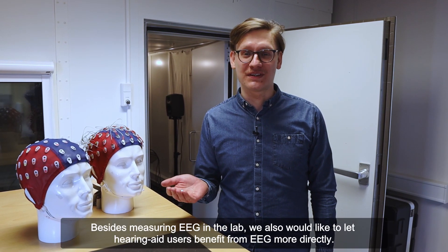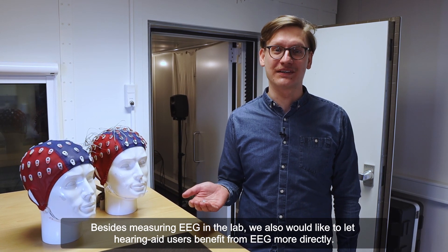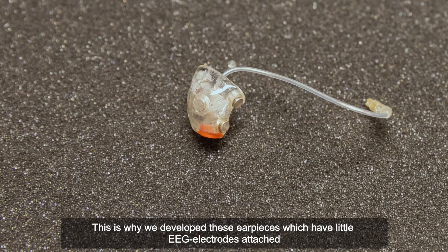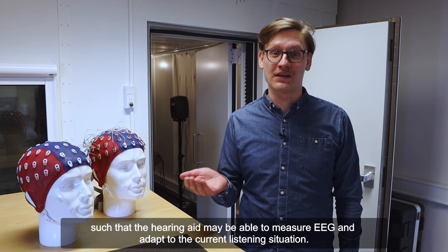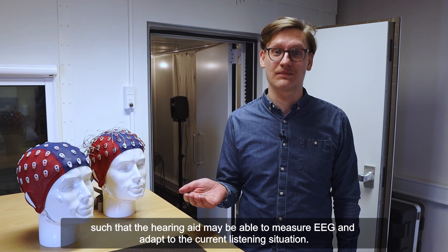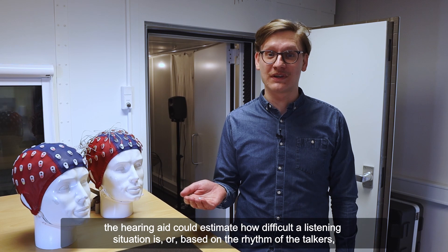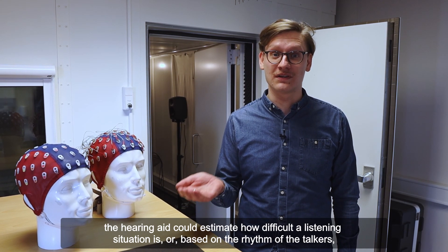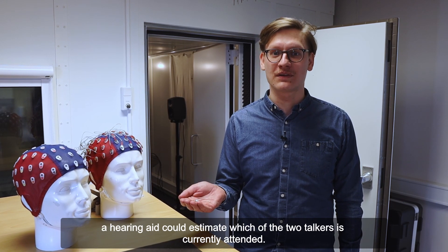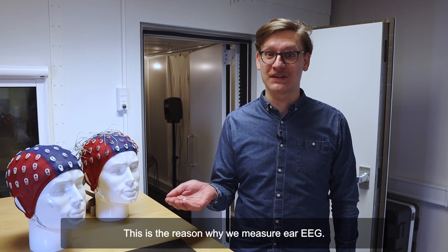Besides measuring EEG in the lab, we also would like to let hearing aid users benefit from EEG more directly. This is why we developed these ear pieces, which have little EEG electrodes attached, such that a hearing aid may be able to measure EEG and adapt to the current listening situation. For example, based on the alpha waves, a hearing aid could estimate how difficult a listening situation is. Or, based on the rhythm of the talkers, a hearing aid could estimate which of the two talkers is currently attended. And this is why we measure ear EEG.